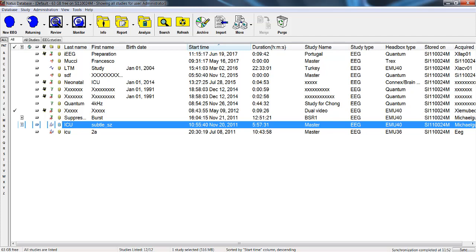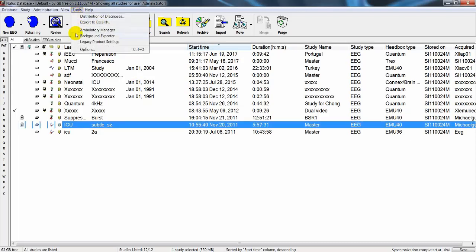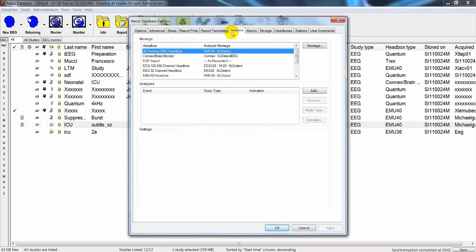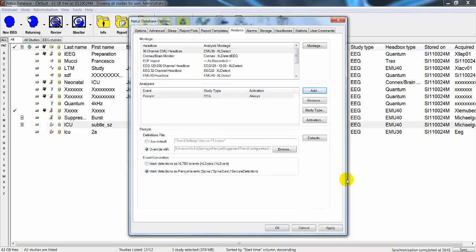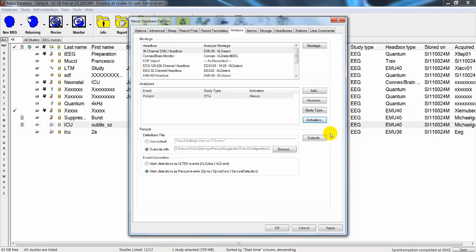Once you have purchased the Persyst license and installed the software, you have to activate the Persyst analysis from within the NeuroWorks database. Click on Tools in the main menu, then Options. Once the Natus Database Options window appears, click on Analysis, then the Add button to show the analyzers list, and select Persyst from the list. You can then select the study type — for instance EEG only — and then the activation mode. Selecting Always makes the Persyst analysis available for EEG studies and the process will start when the study begins. Once the selection is completed, click OK.